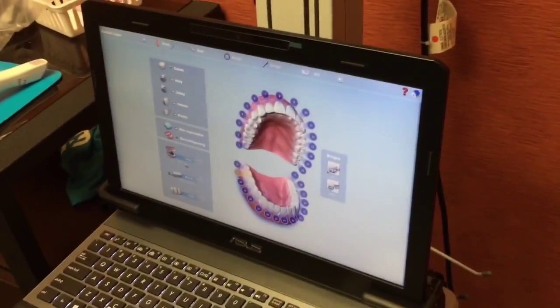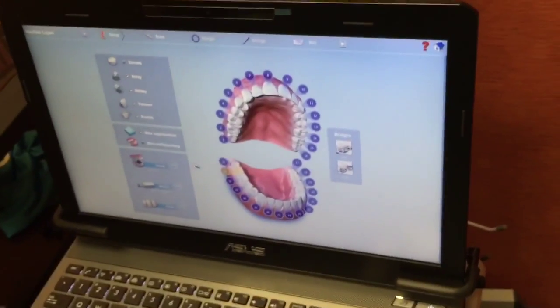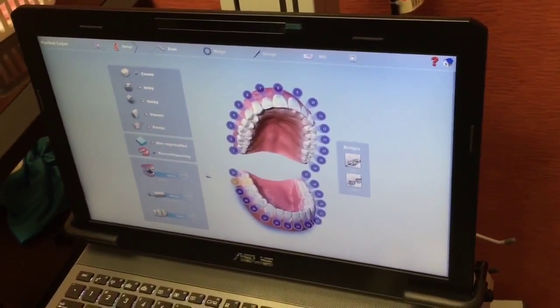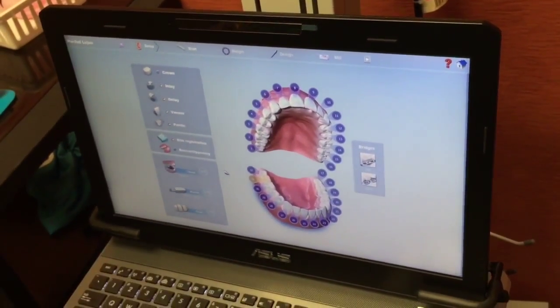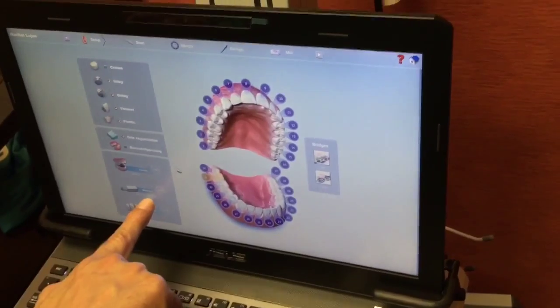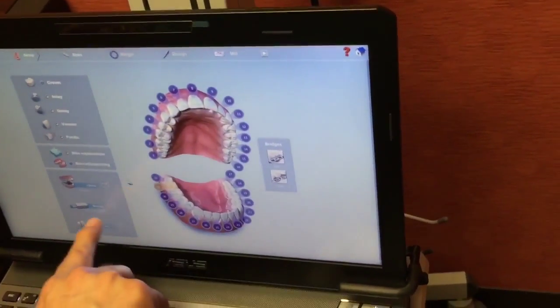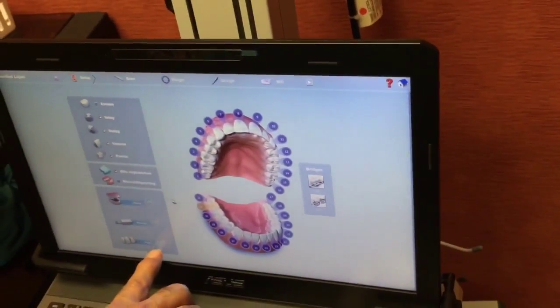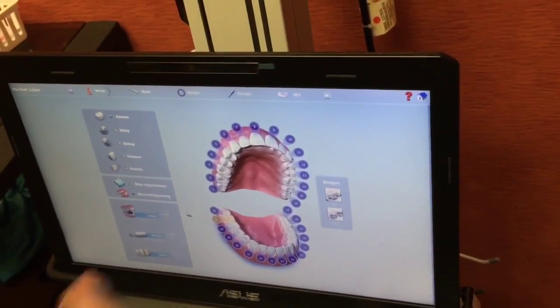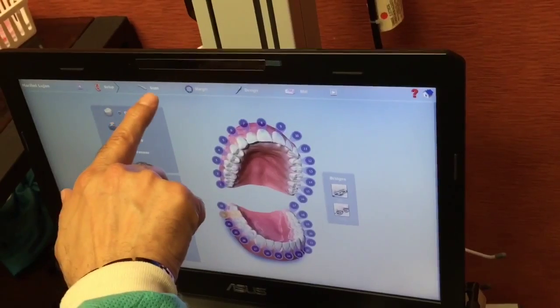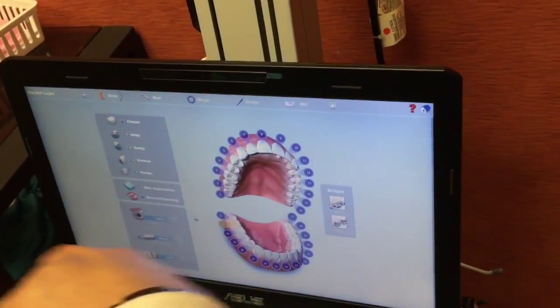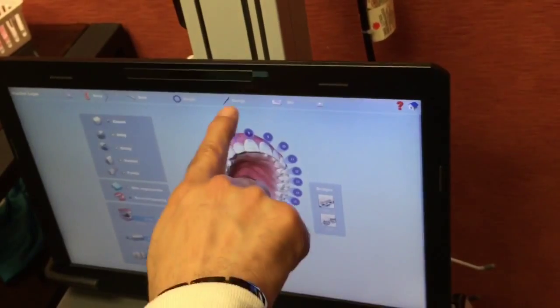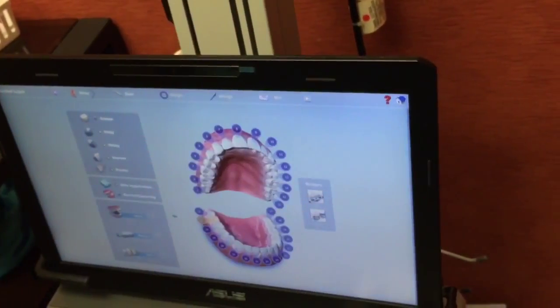Then you pick what library. They have a different shape of the teeth that the computer will design that crown shape for you. And then the material is those little blocks. If it's an anterior teeth, you want high translucency, low translucency for your back teeth. And then you select your shade. See, they have tabs. We're in a setup tab. Then you have the scan tab. After you scan it, then you go to the margin. You have to trim your, mark your margin, and then you start designing. And then you mill at the end. See, it's a step-by-step.